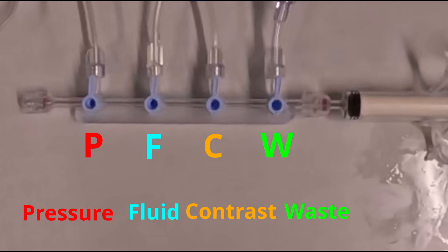When I was learning this, they taught an imaginary army soldier called Private First Class Williams. You can use that to remember the four ports.